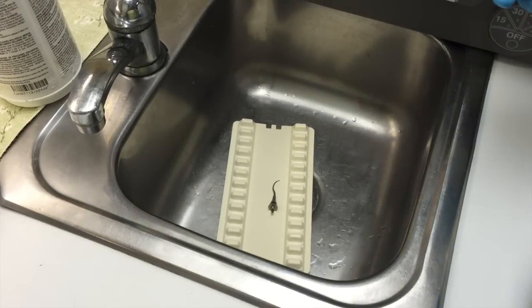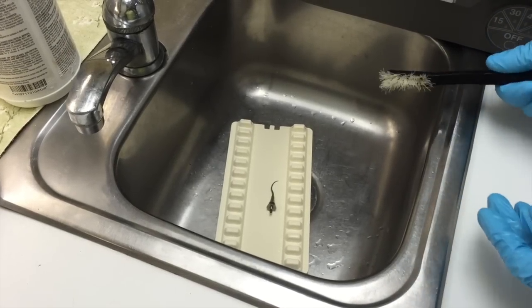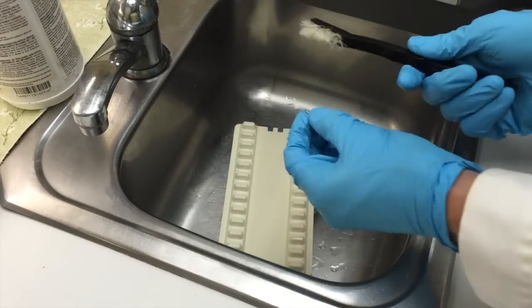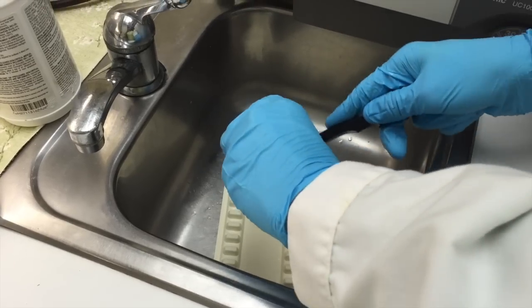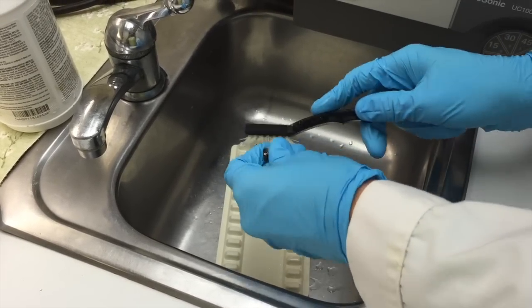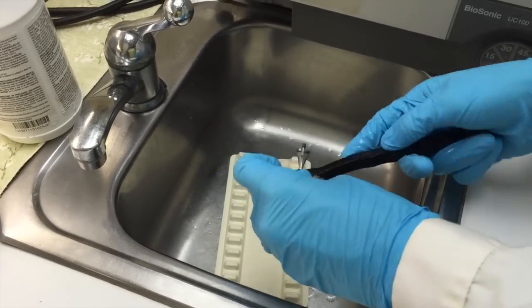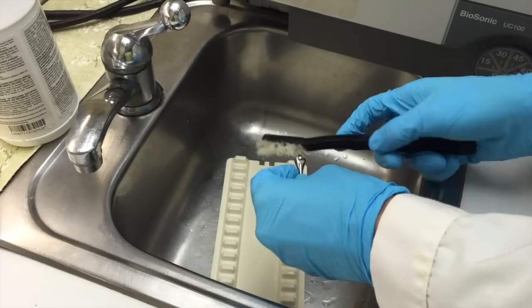Now that these have had the disinfectant on them for the required two minutes, we're going to take a sterile instrument brush and thoroughly brush off all the surfaces of these two things before we put them in the autoclave to sterilize fully.